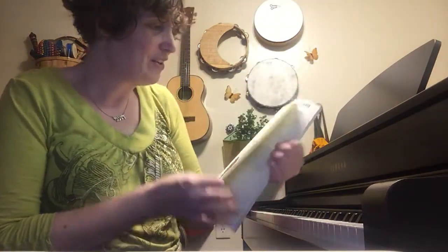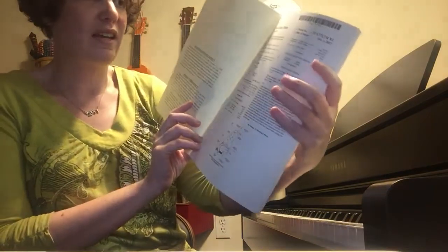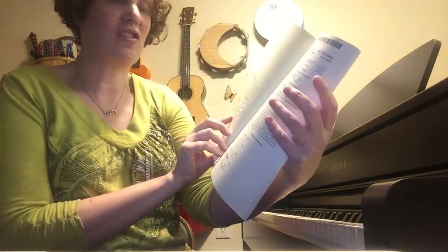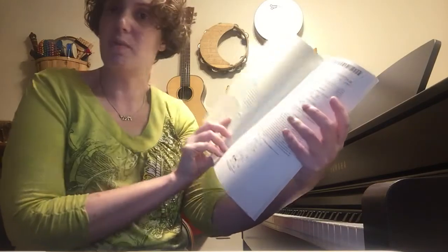I had no idea what a patent looks like. Here on the first page, it shows my name, my patent number, and the title, which is the name of the device: Hand Support Method and Device for Somatosensor Input to the Palm.